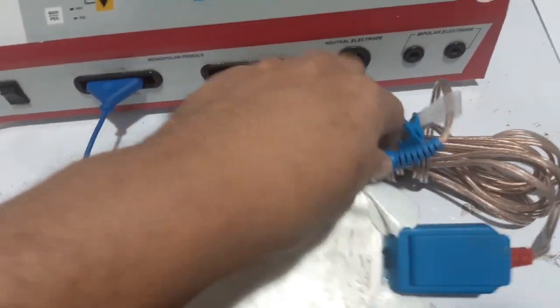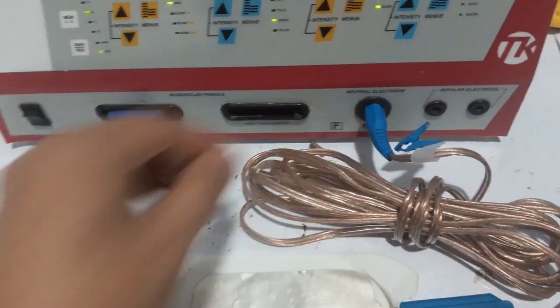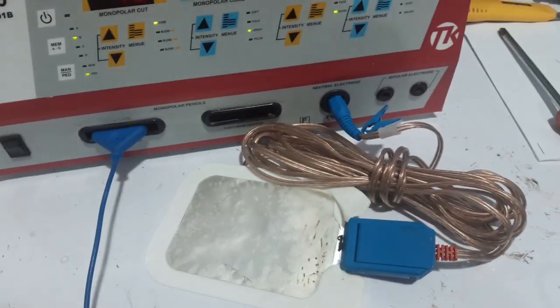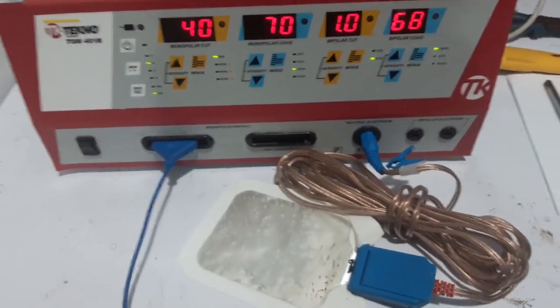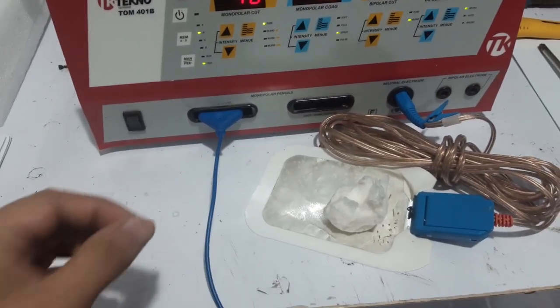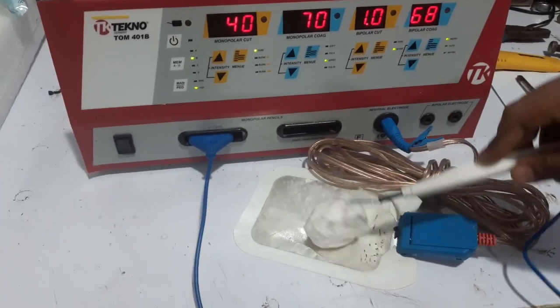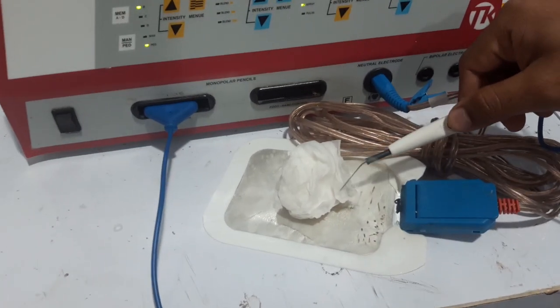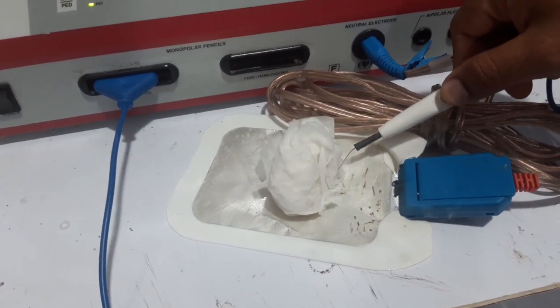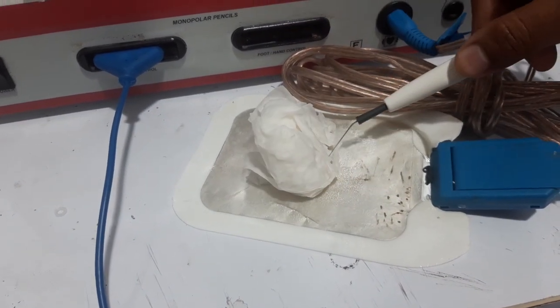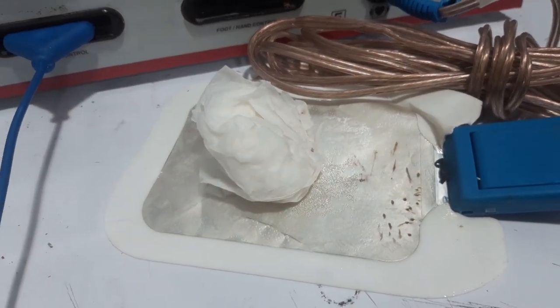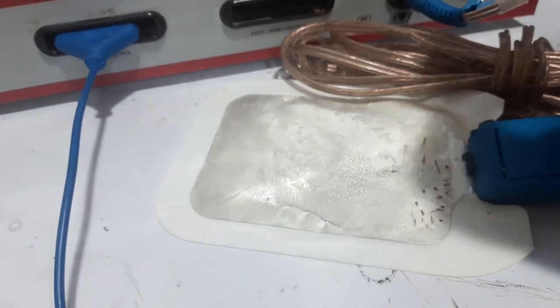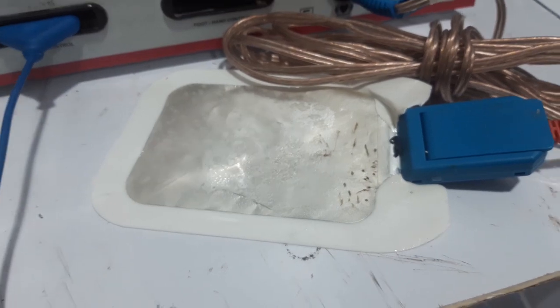If I connect this one to the port, this error will be gone. See? Okay, accessories are connected. Let's try to test the unit. Good, see it's firing. Again, so no more error and the unit is working fine.